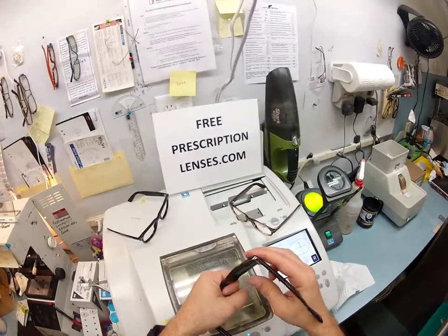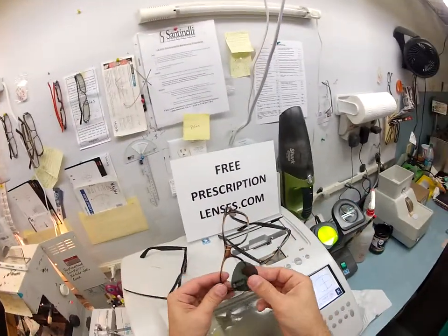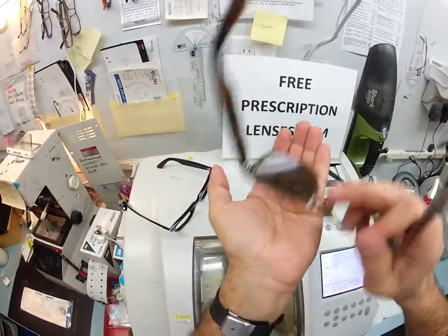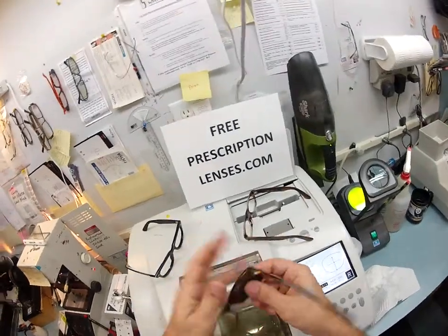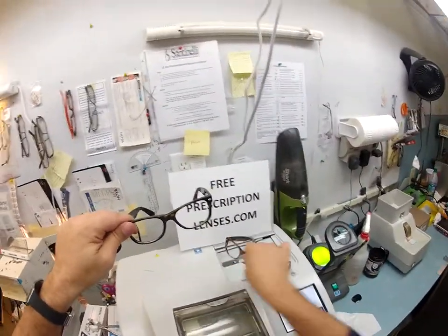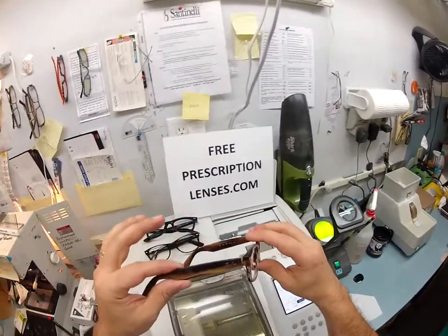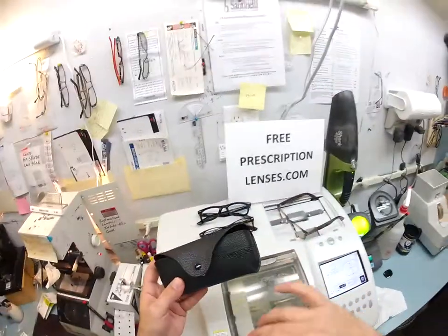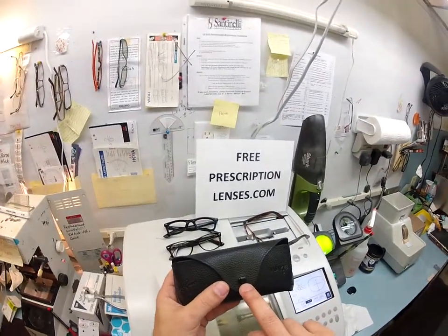To take the lenses out, I turn the frame downward, grab the frame with my left hand, pull it towards me with my finger, and then with my thumb push out on the lens — it pops out. If I were to try and mount it into the 5184, it's the same shape and it actually goes in, but it's just a hair loose — hopefully you can hear that rattle. Not enough to make it fall out, but there is a rattle. Ninety percent of all Ray-Ban sunglasses are made in Italy; 90% of their ophthalmic glasses — designed to have prescription lenses put in — are made in China. The 5184 has a Wayfarer case with a black button that does not say Ray-Ban. Only the sunglasses say Ray-Ban on the button.